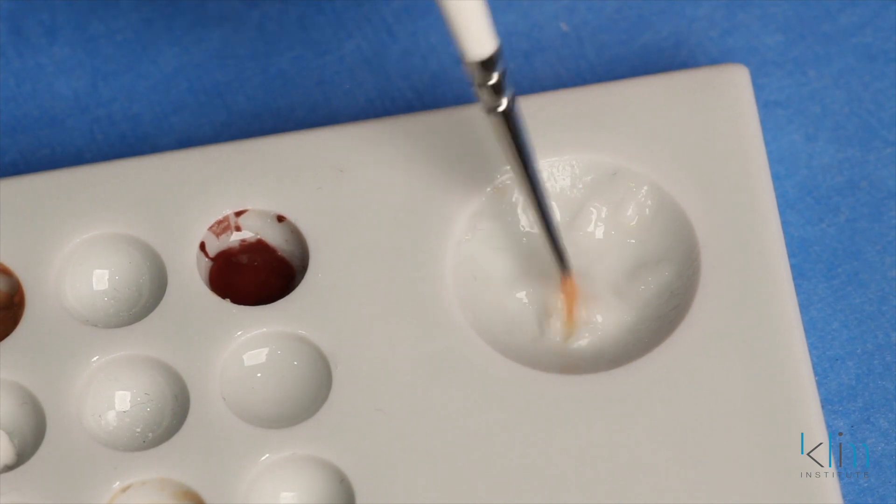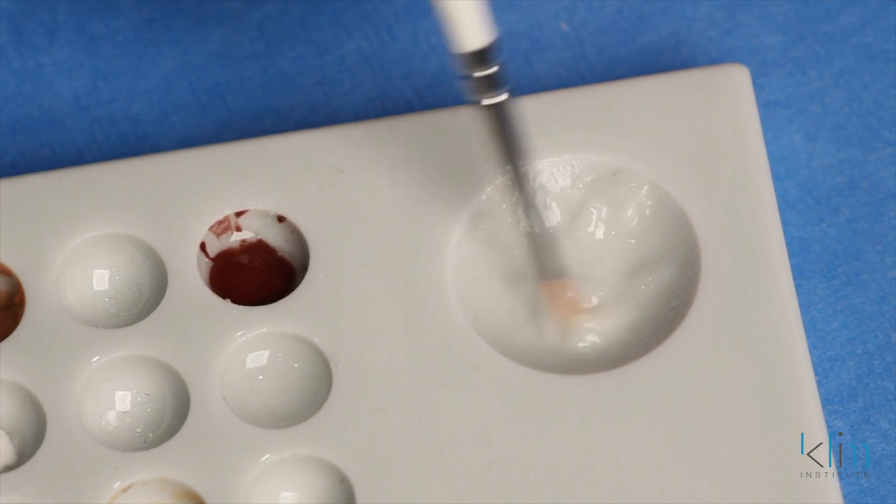Because if you see brush strokes in the glaze, then it's going to be too thick. On the other hand, we don't want it too wet, otherwise it won't get enough glaze on there. So my method is to pre-mix it just like warm honey. Then we start applying the glaze to the surface.